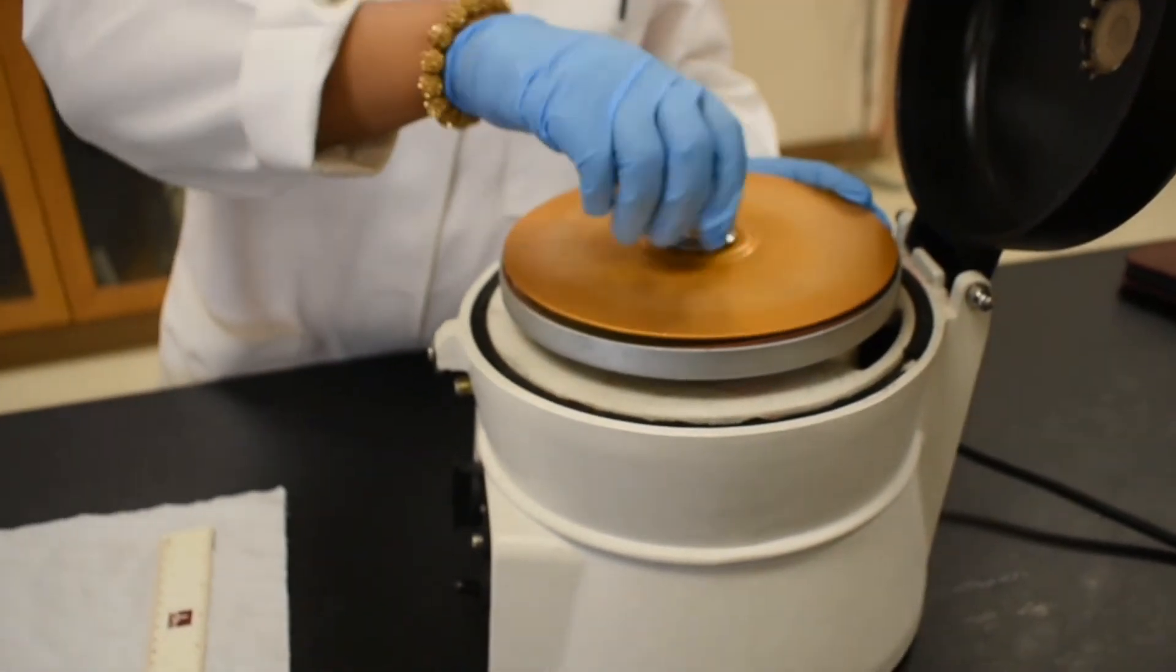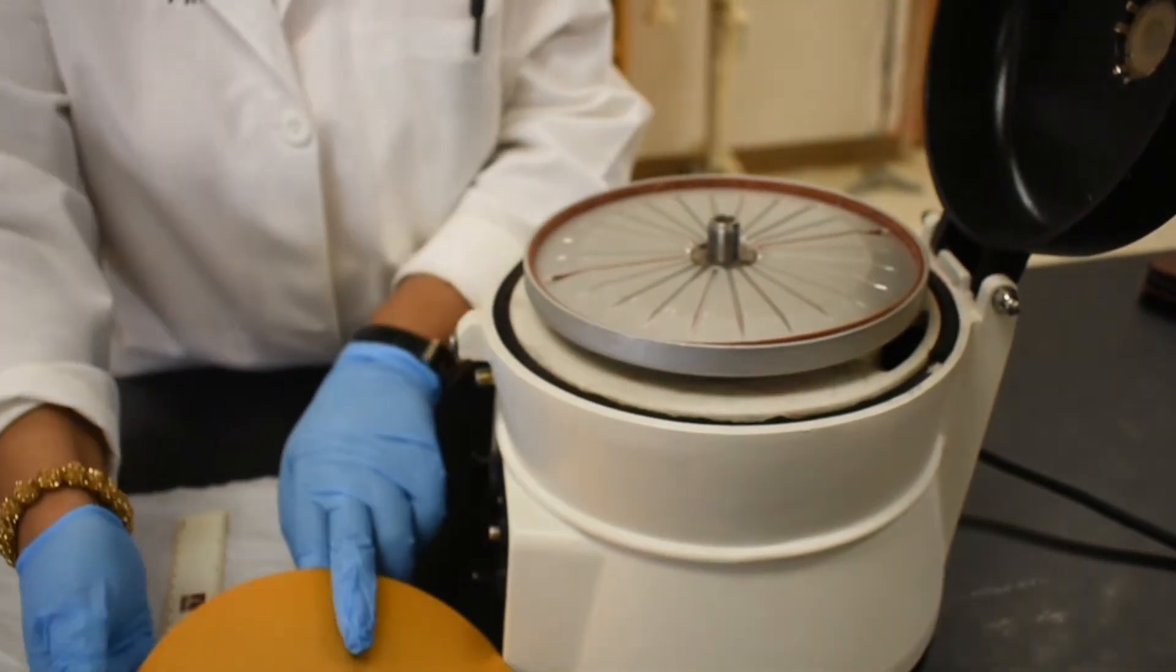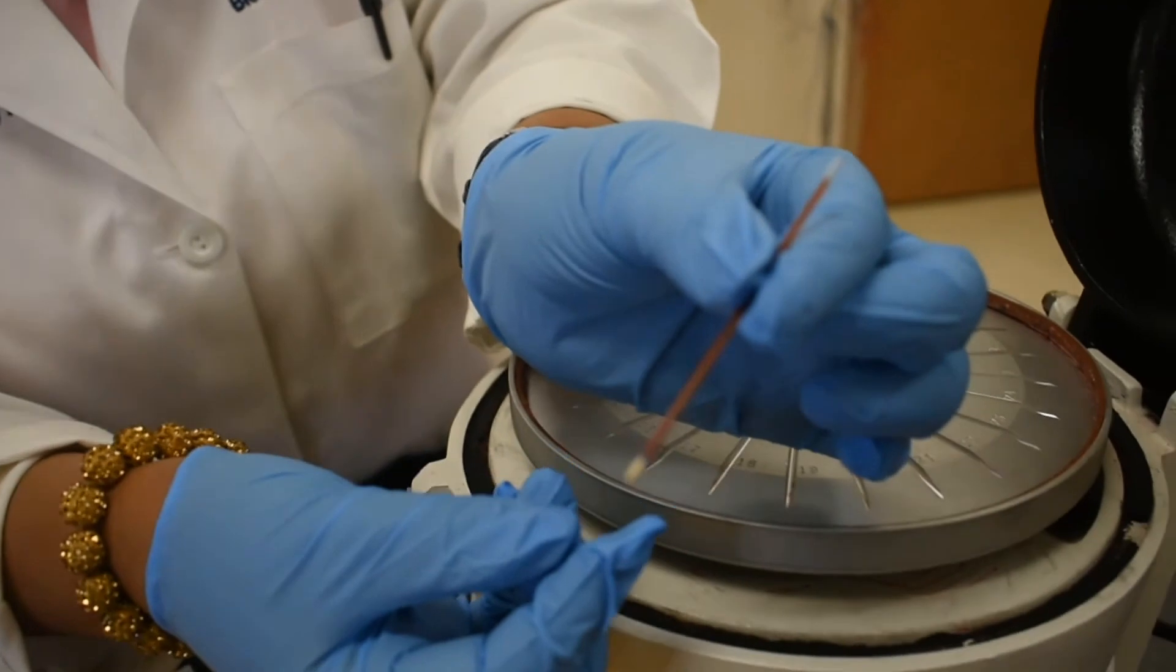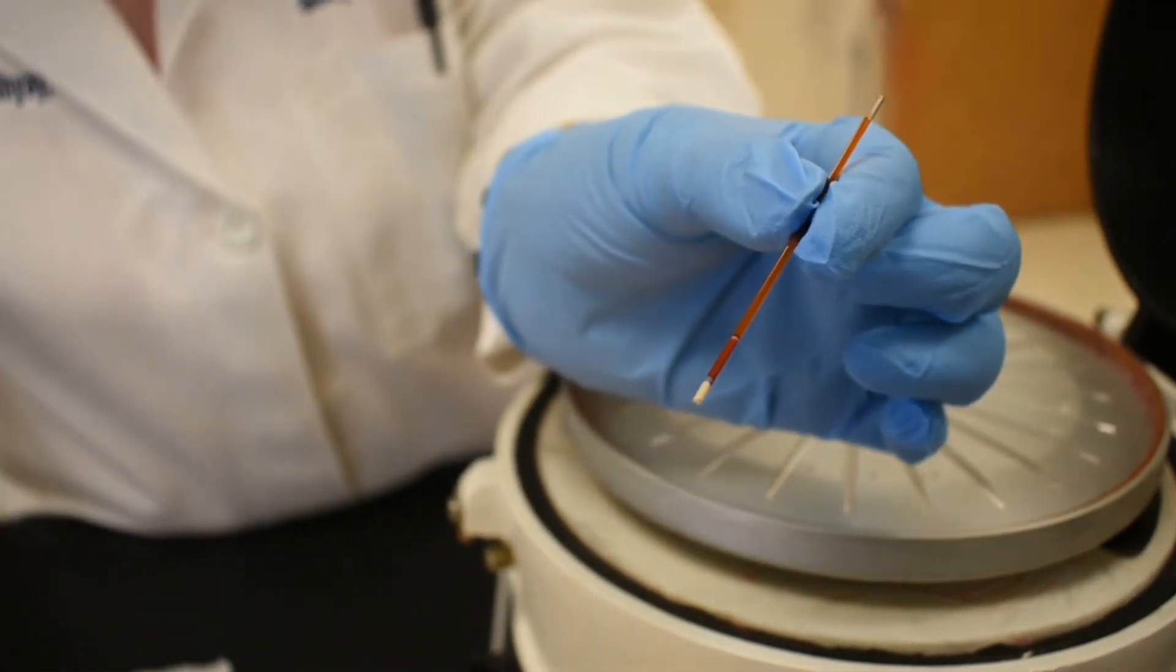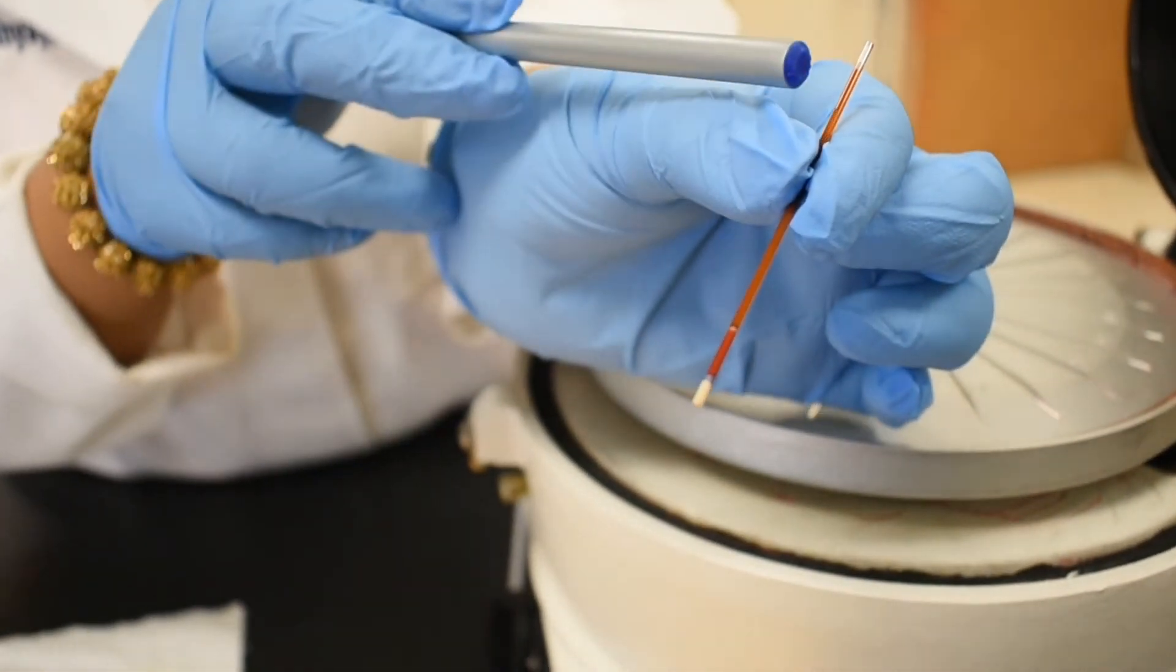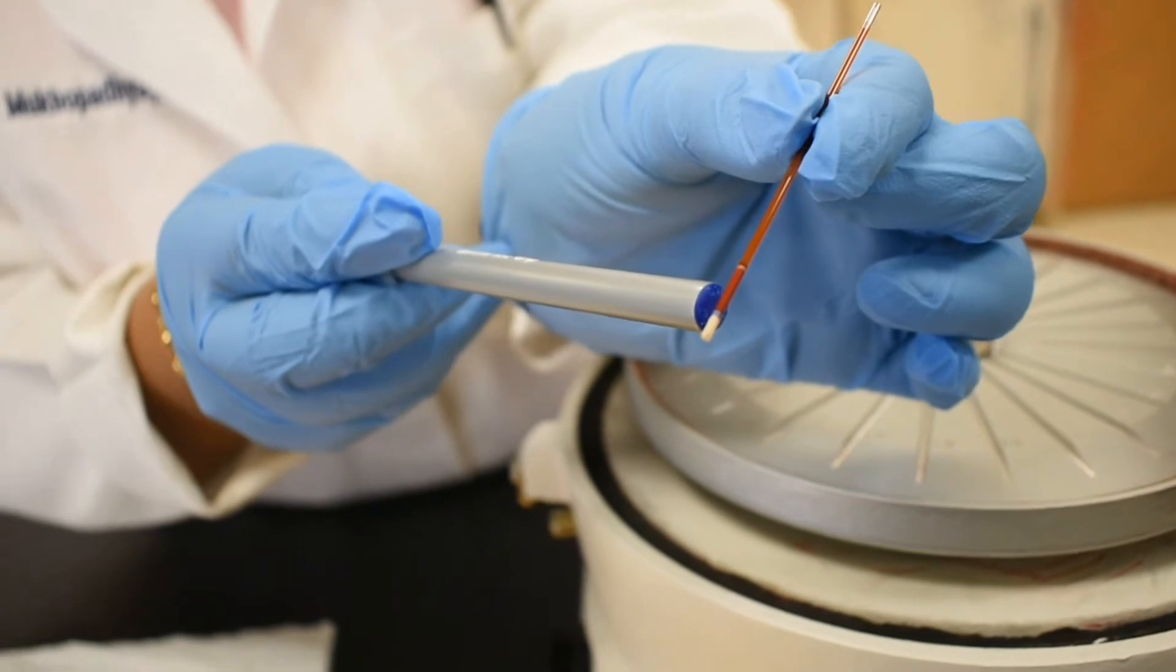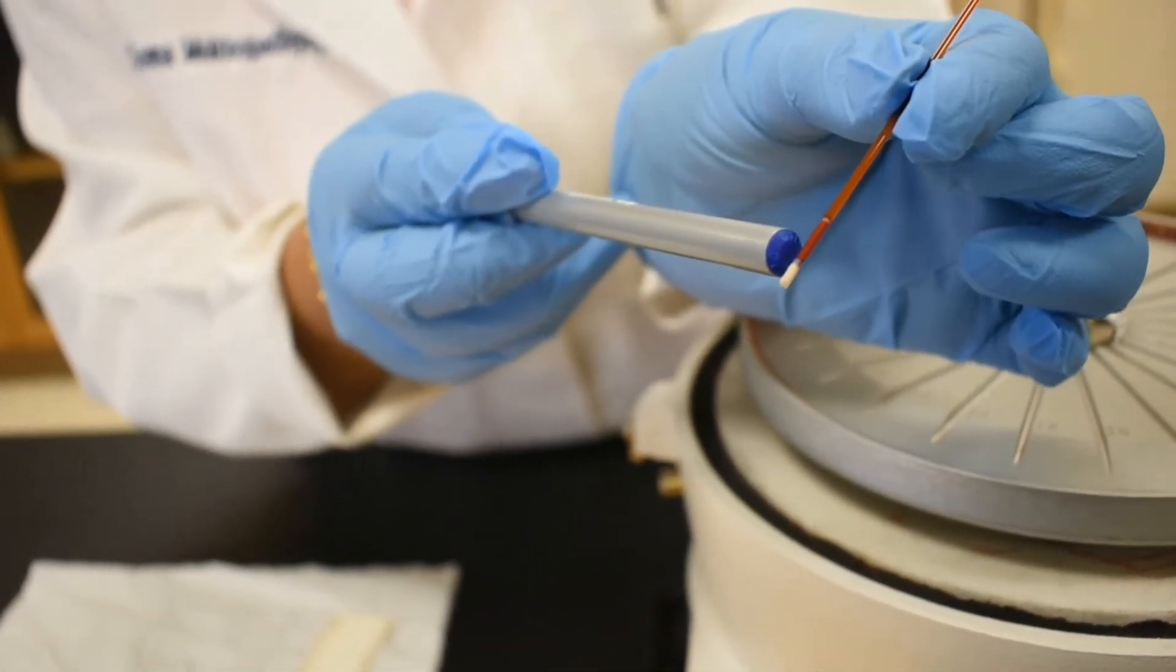We did the same thing. We have to take the screw cap off. And here is the capillary tube. Now if you look here, you can distinctly see the top part looks transparent. That's the plasma. And the bottom, that's where the red blood cells settle down by centrifugation.